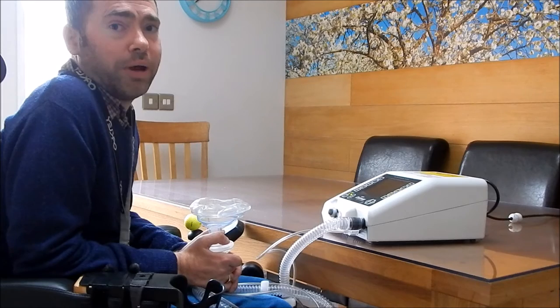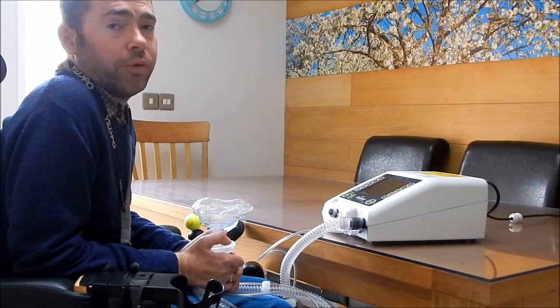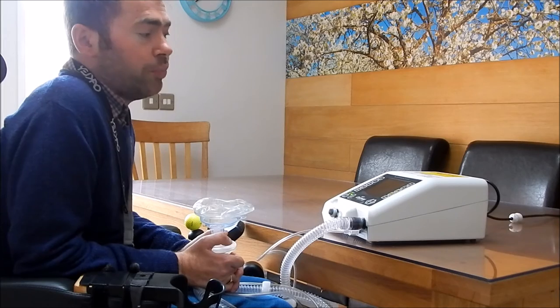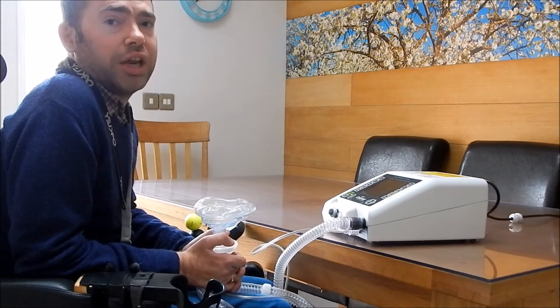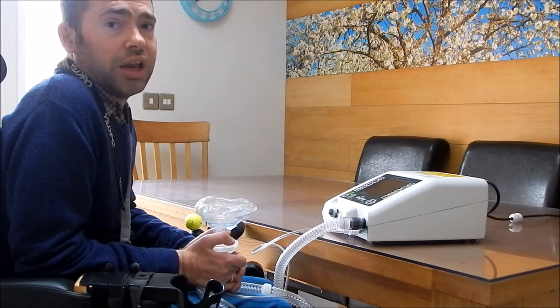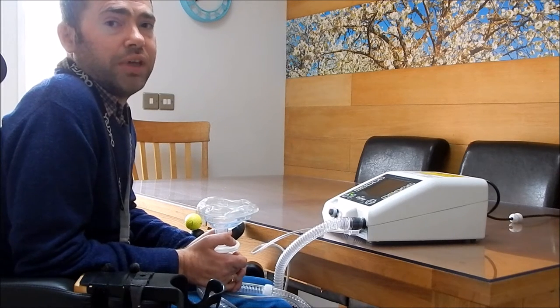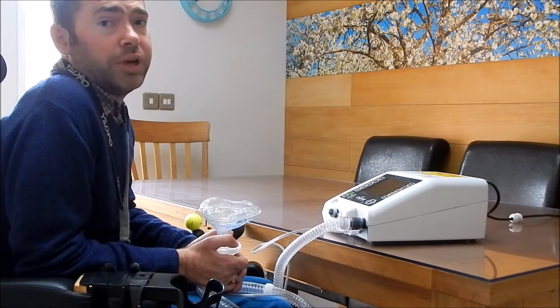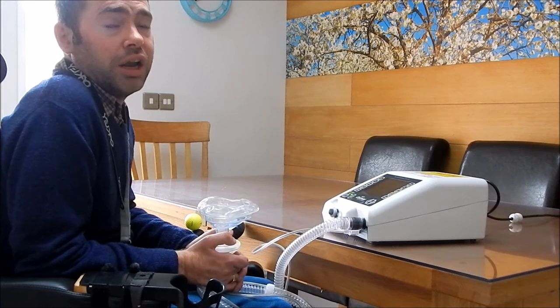I've been asked to do a little video about a cough assist. I use one every day and I find it's very helpful from a point of view of trying to keep my lungs going and also to avoid chest infection. A brief description of what the machine does is it forces air into the little canalways in your lungs, moving the saliva and thick secretions that gather there, and then it pulls them out. Expanding your lungs - all these little bits of secretions, if they stagnate, will result in the little canals closing out and becoming non-functional, and also help cause chest infection. So it's good to keep that going and I find it very helpful.